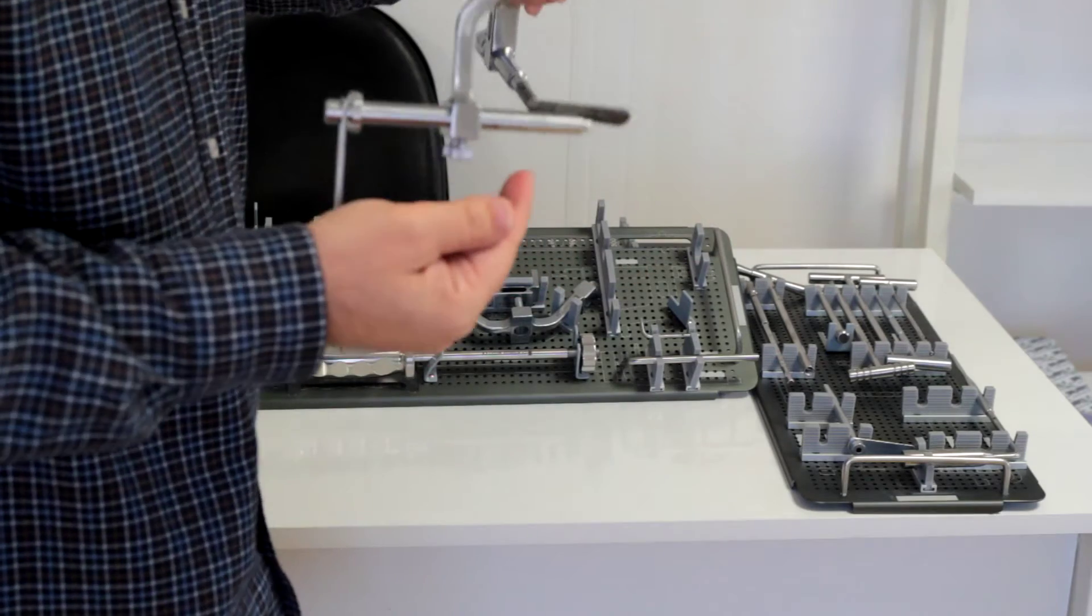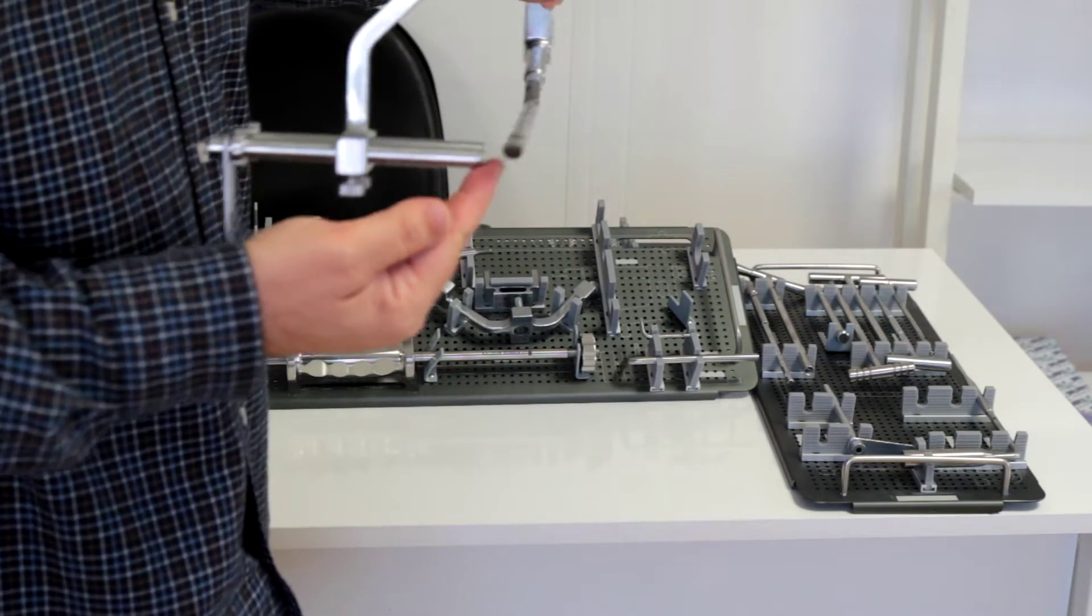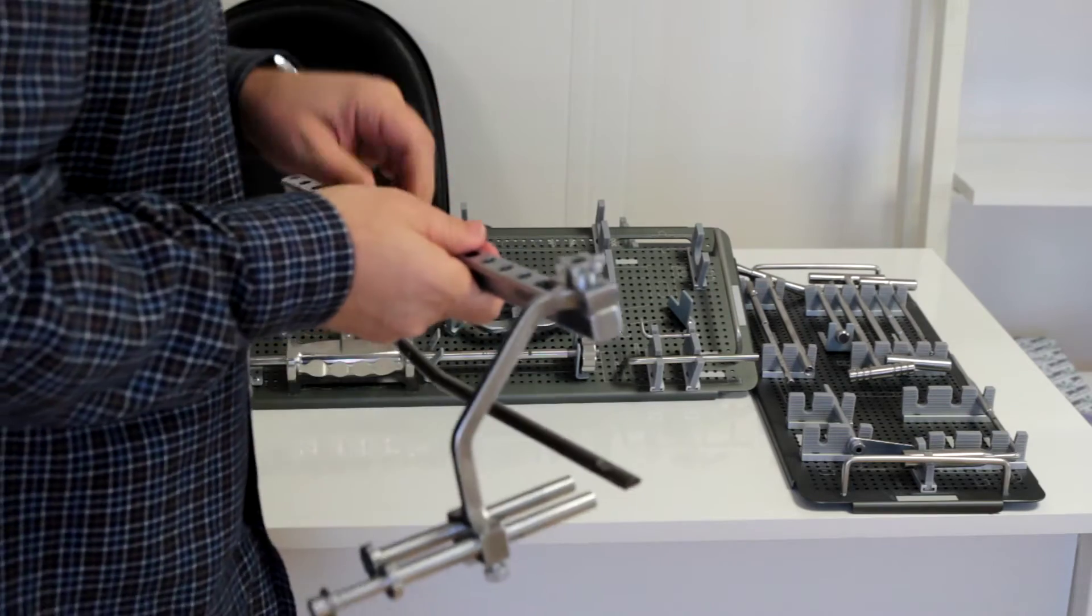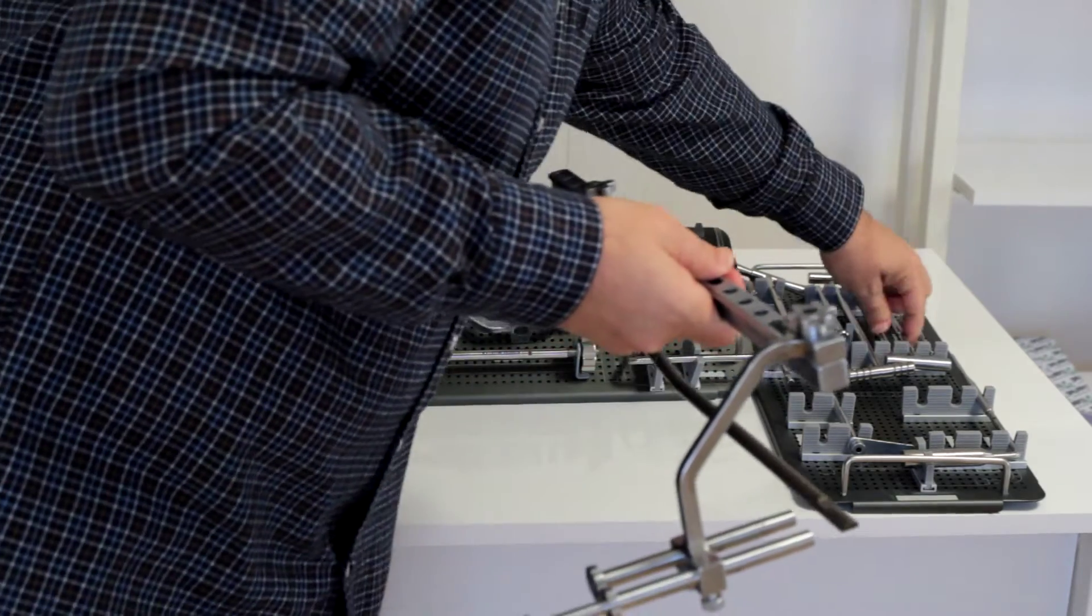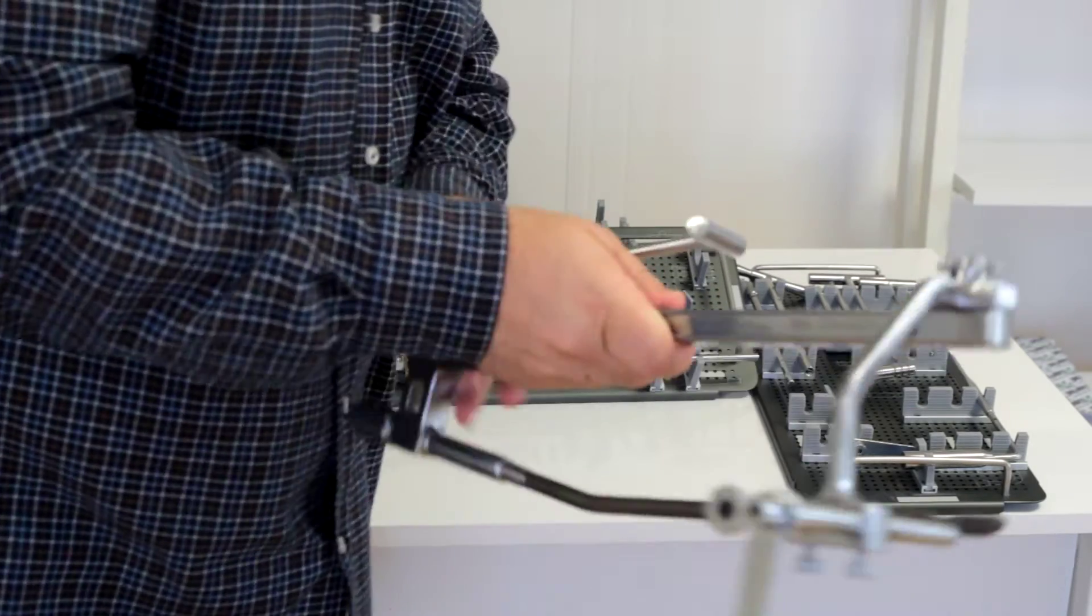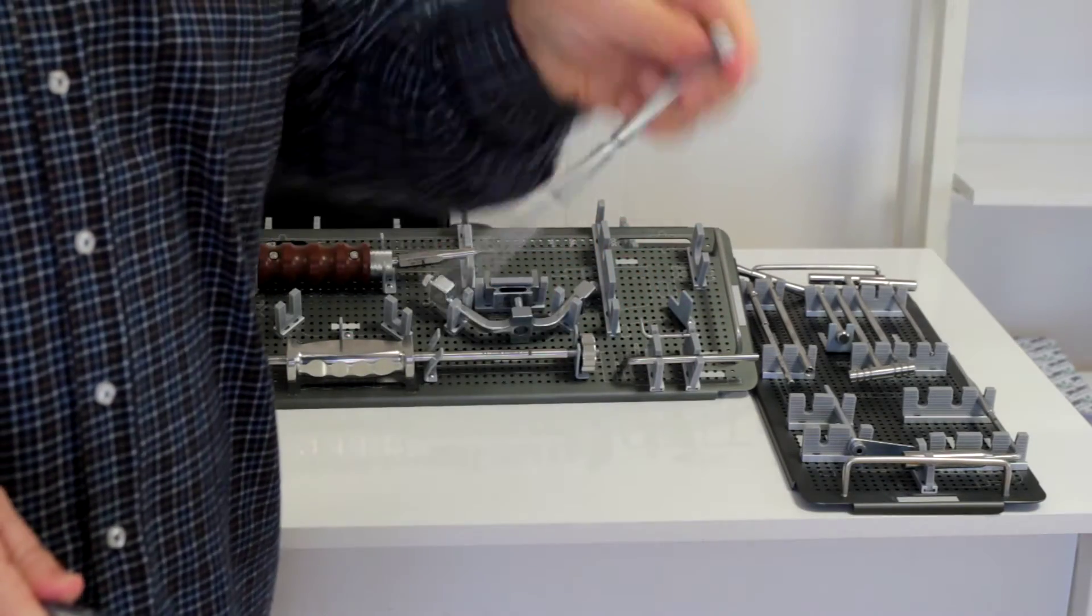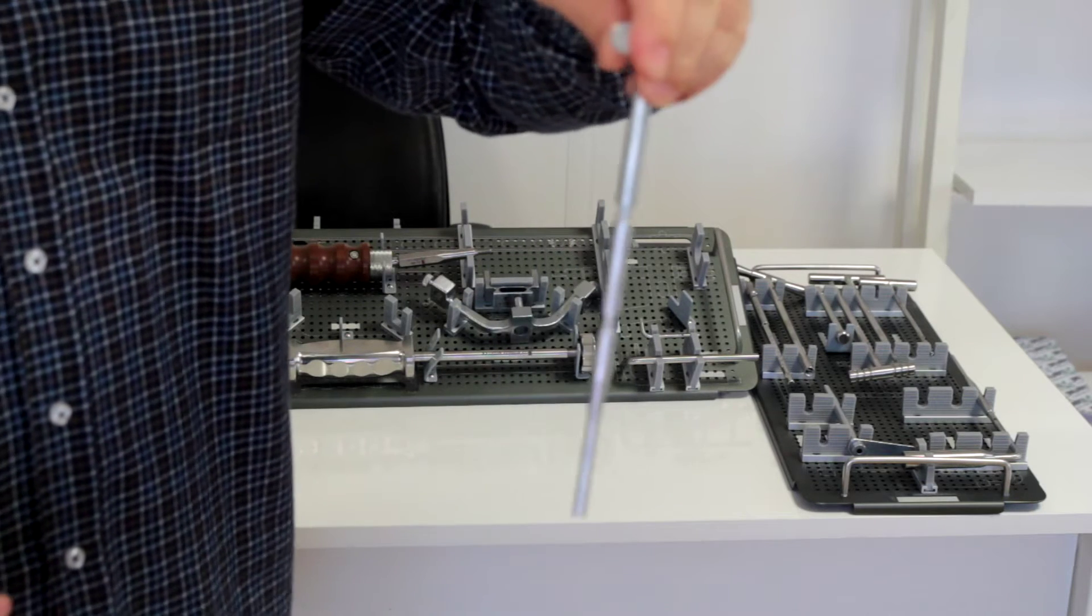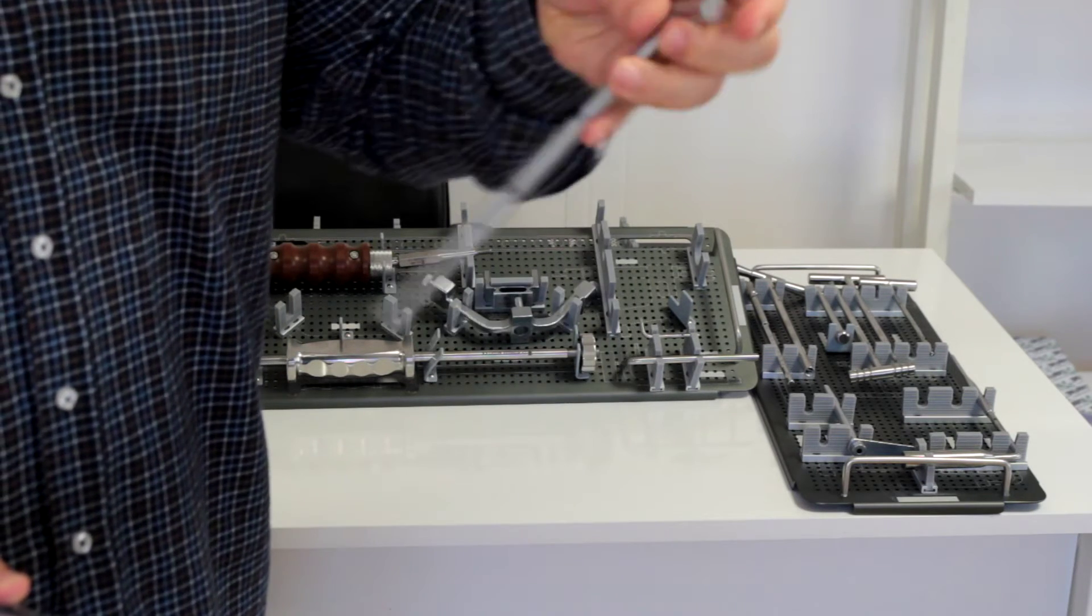So in order to place drill guides correctly, you have to push the nail down. To realize this, you should use this part. As you can see here, it has some guide points on it.